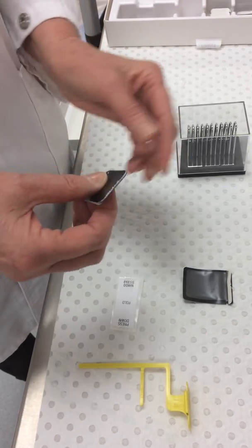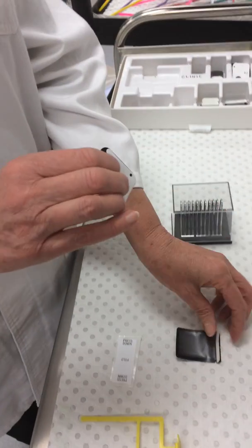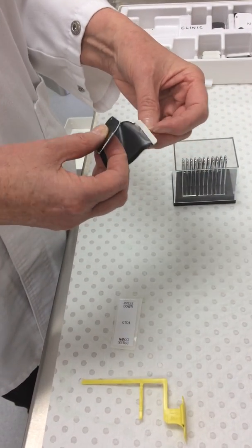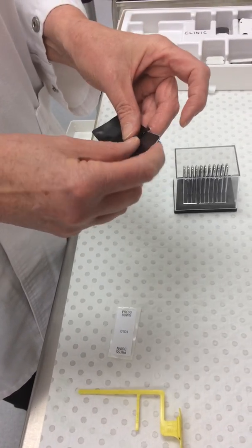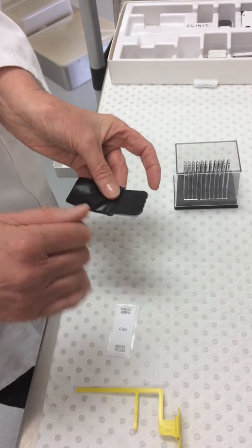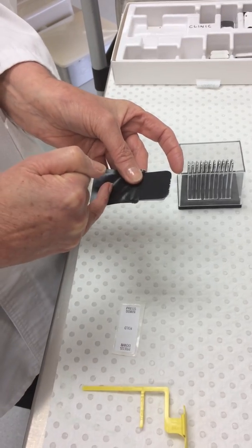Now when you place the phosphor plate and the cardboard into your plastic barrier, you open it up and then you slide it in. The important thing is that you slide in black to black.